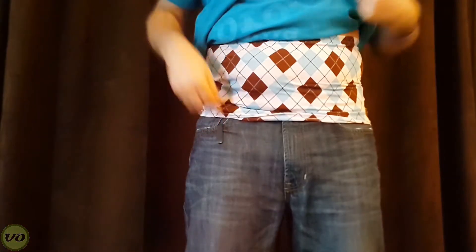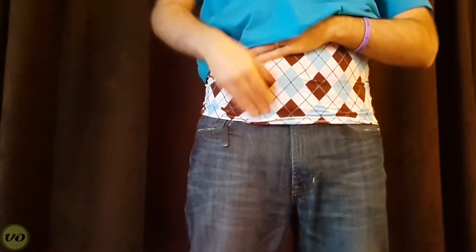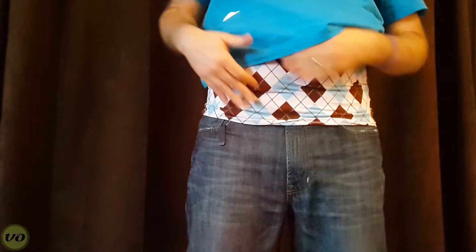So I want to talk to you a little bit about some of the features of this particular wrap. One of them is the fact that it has two pockets. Each pocket allows you to put the pouch into it, and whether or not you have a colostomy or an ileostomy, or if you have two stomas, it allows you to put them in there and it keeps it really secure. One of the really nice things also about having pockets, as opposed to a basic maternity band, is the fact that a lot of the times, as your pouch fills, it tends to fall just below where your wrap is. But when you have the pockets there, it keeps everything enclosed and you never have that issue. So that's a really great feature.